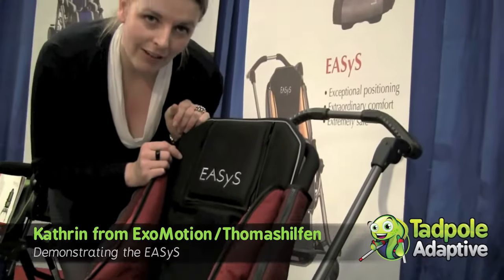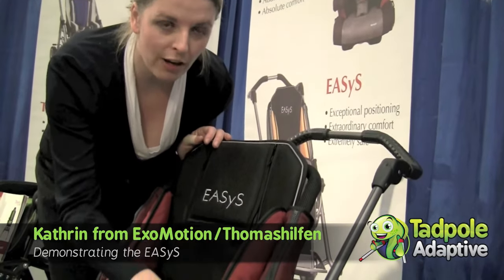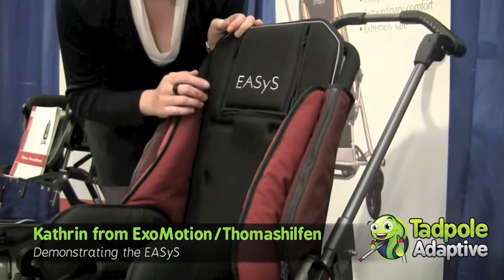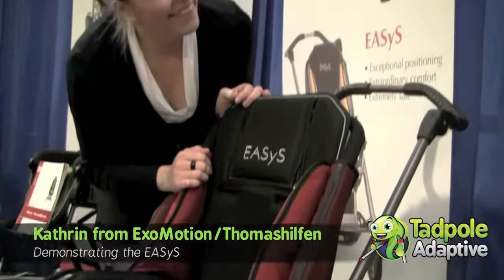What is very nice for you as parents is that you can decide what color you want to have. We have five different colors like red and yellow and — teal. Sorry about that. It's aqua, I guess it is.